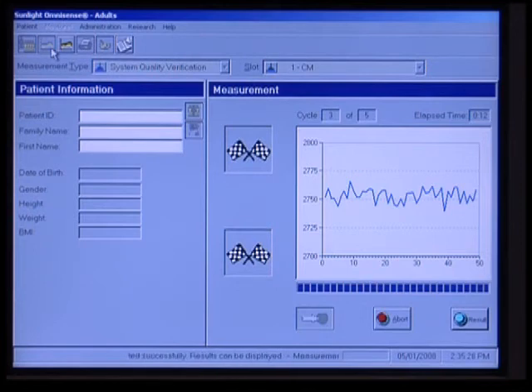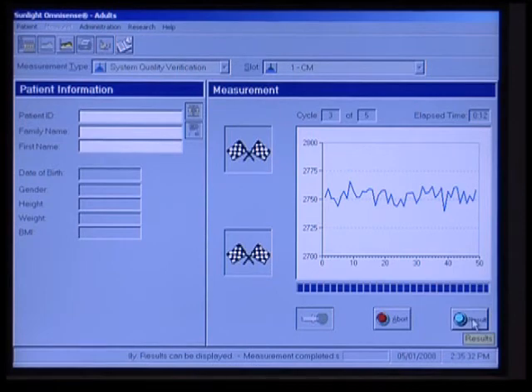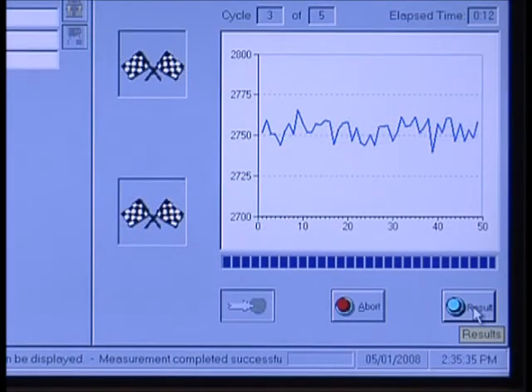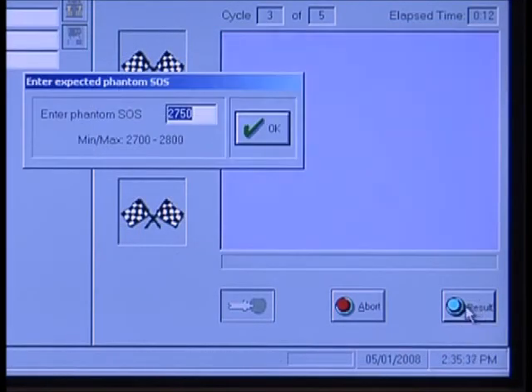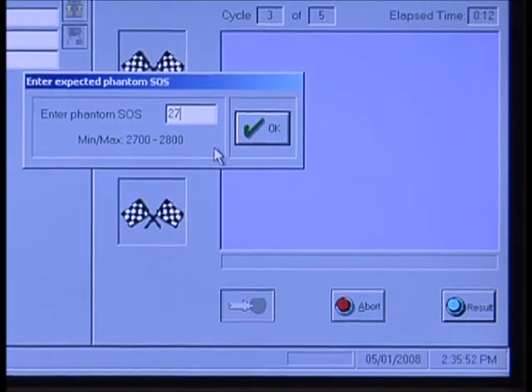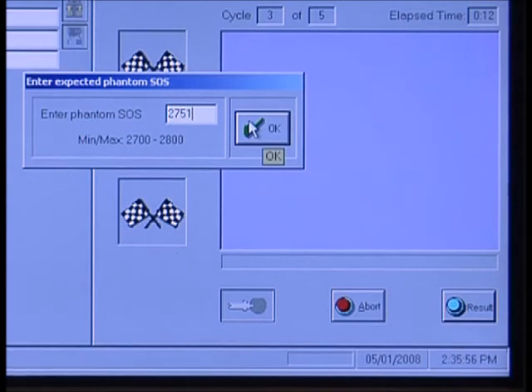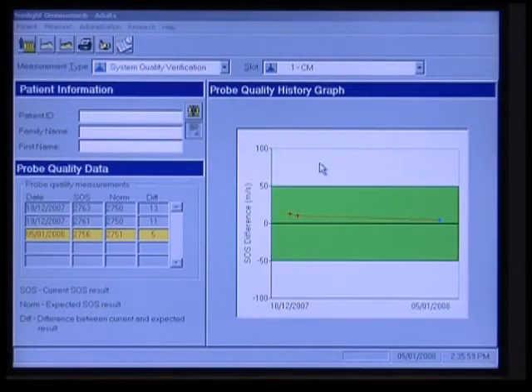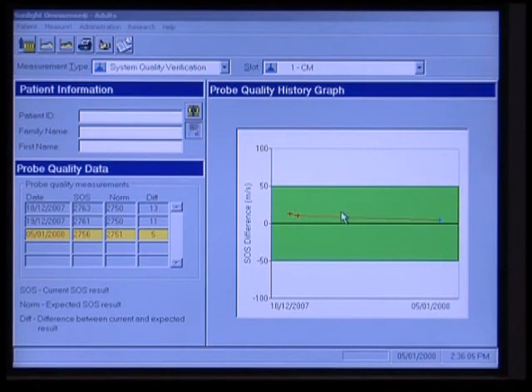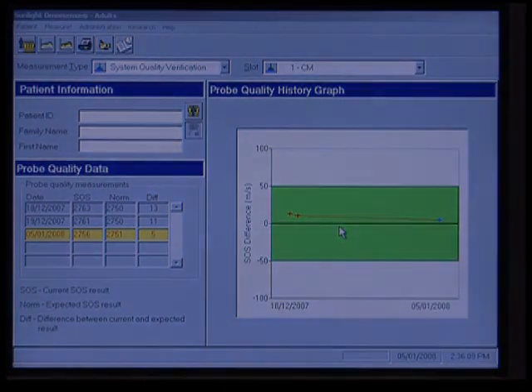We do have the result button illuminated and active, so we can click on it now. We see a prompt to enter the phantom SOS. Recall the SOS number for the temperature we had was 2751, so I'm going to enter that and click OK. We see that our particular unit is calibrated effectively — anything within the colored bars means that we're okay and that our quality assurance is up to par.